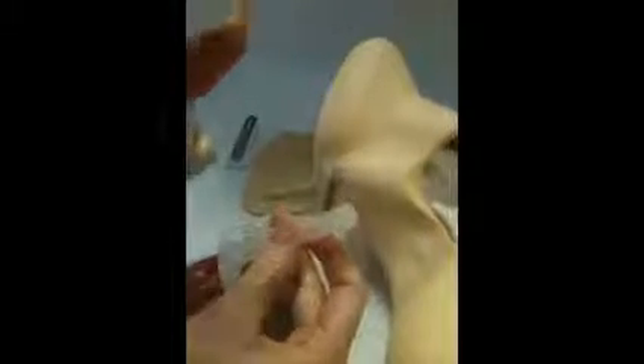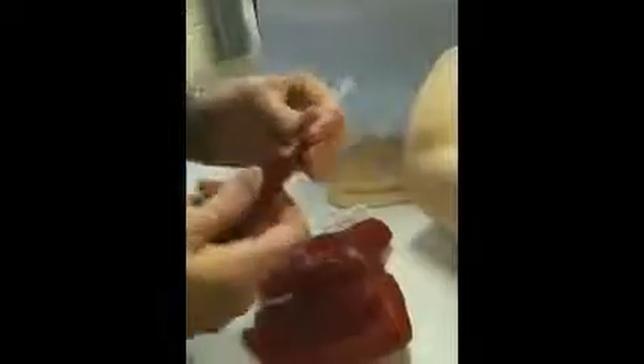Here's one I prepared earlier. I've got a syringe filled with fake blood. You take the second needle and screw it onto the syringe that comes supplied, and you fill this artery with blood.